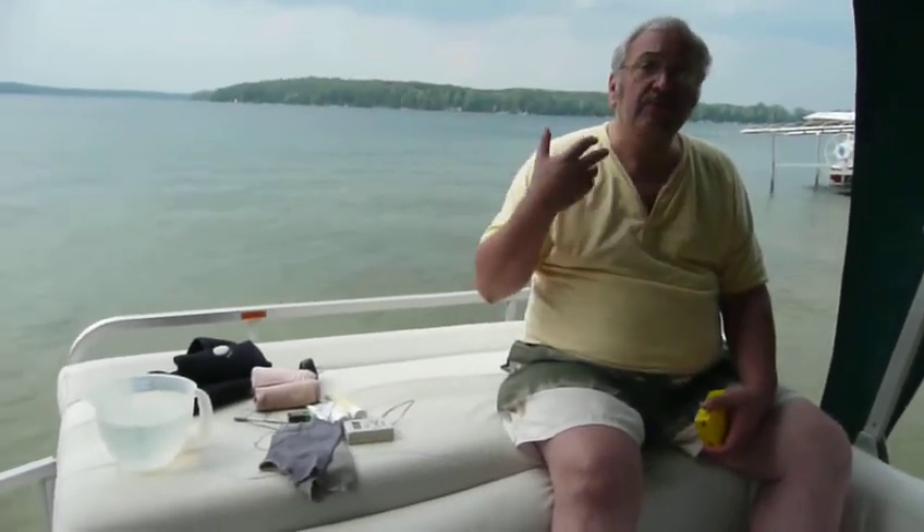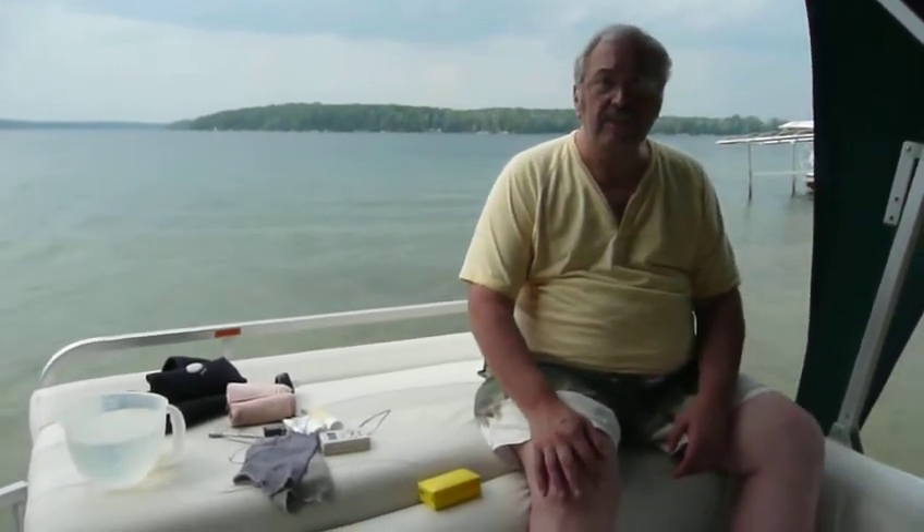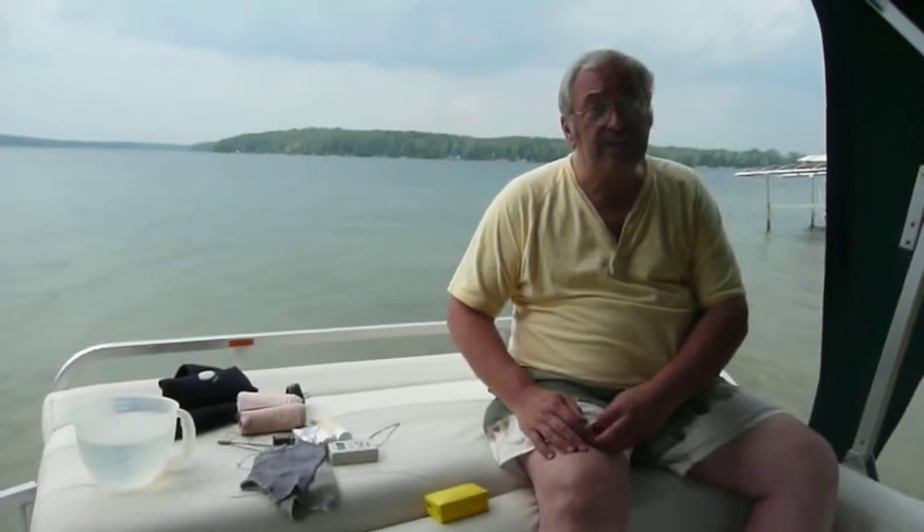I'm here to talk to you about my particular routine for putting this unit on. I have problems with the usual way to put it on — the gels for the electrodes cause skin irritation. I'm one of the 10% that had trouble. I ended up putting on the unit with strictly just water. I came up with my own method so the water method can last for even up to 13 hours, maintaining good amplitude of the electric pulse that this unit is generating.